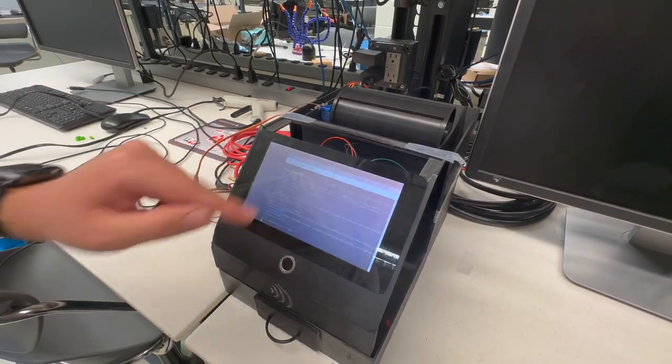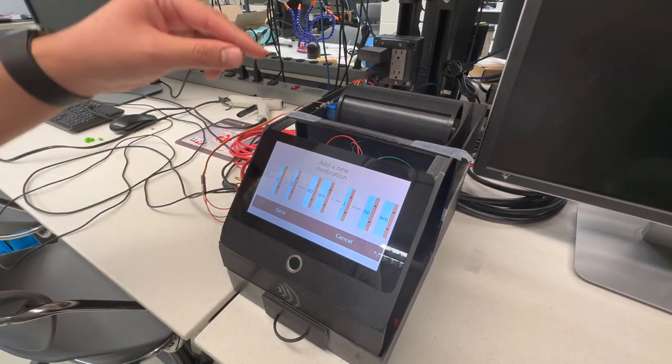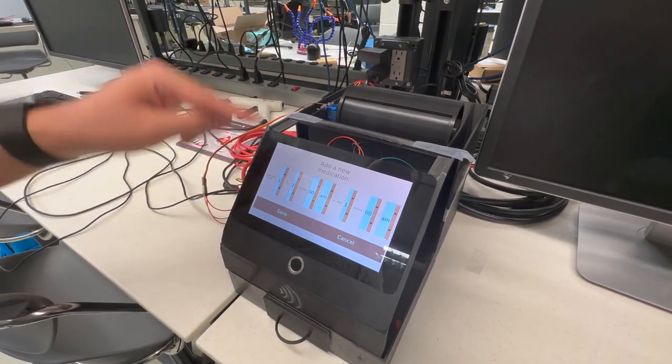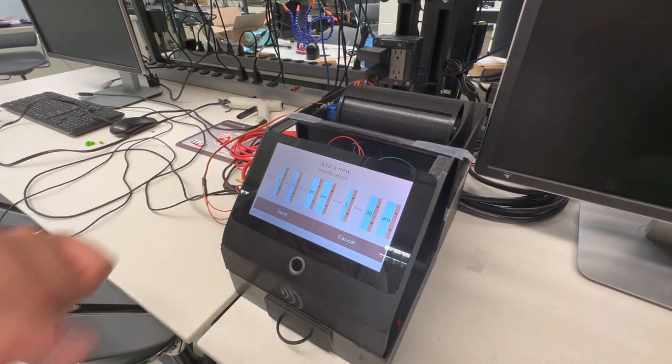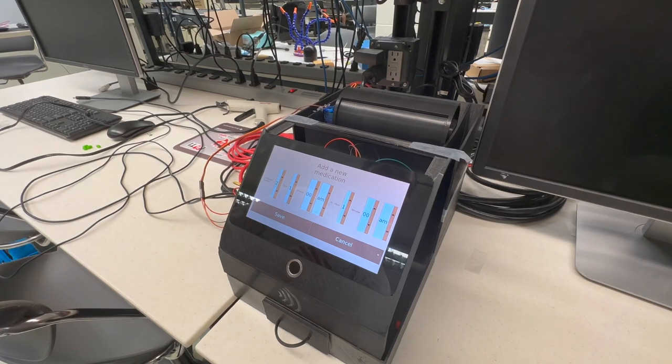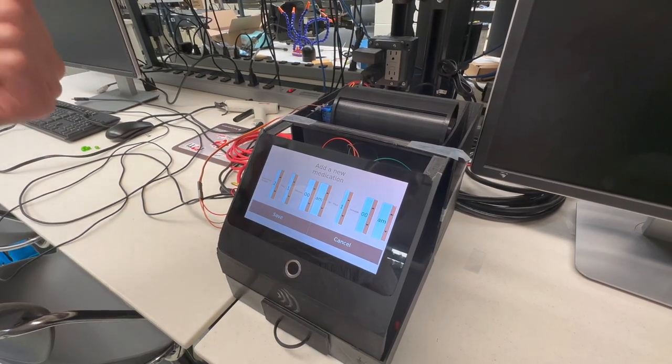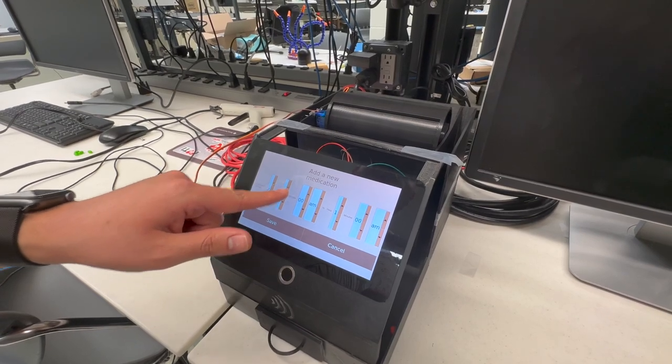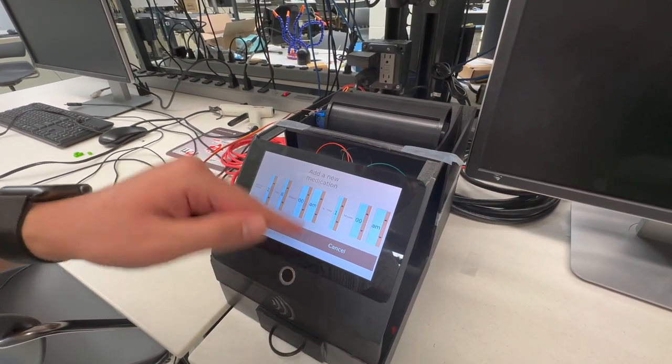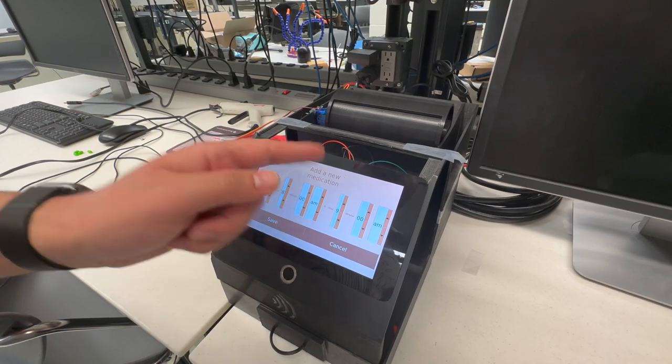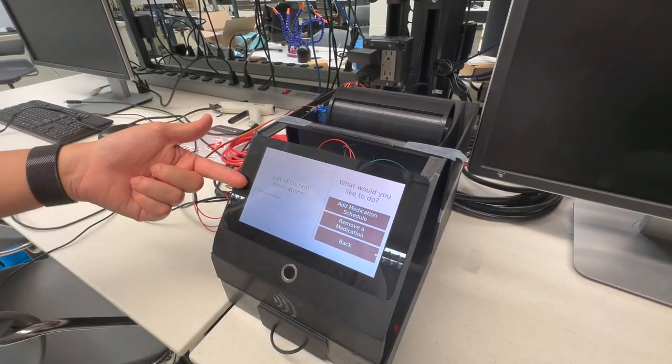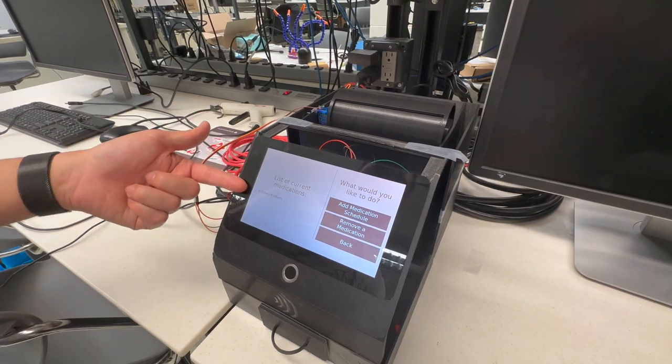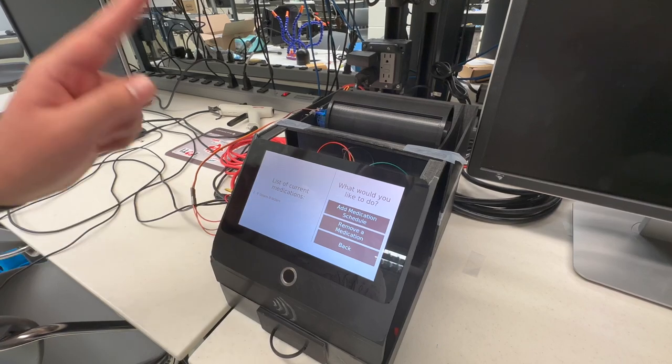Let's add a new medication schedule. All you have to do is select the medication number that corresponds to the chamber in which you place your medication. In this case let's select two. Then you select the range of times from when you are able to take this medication according to your prescription. For example, let's say you have to take a morning pill between 8 a.m. and 9 a.m. Click save, and now it'll show you the current list of medications including the chamber number and the time range.